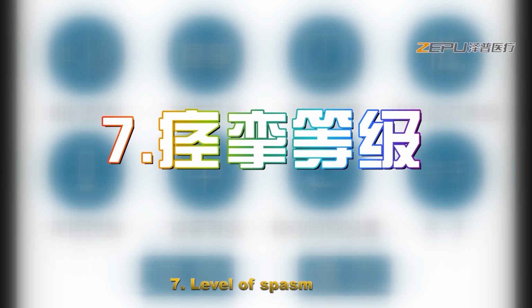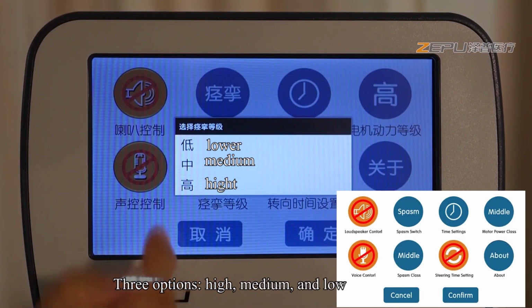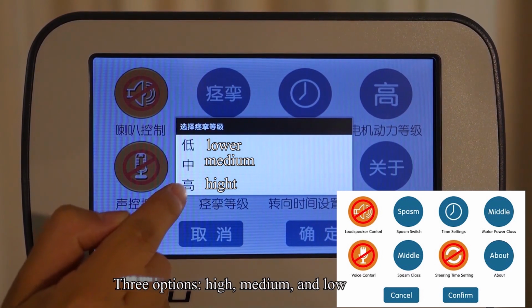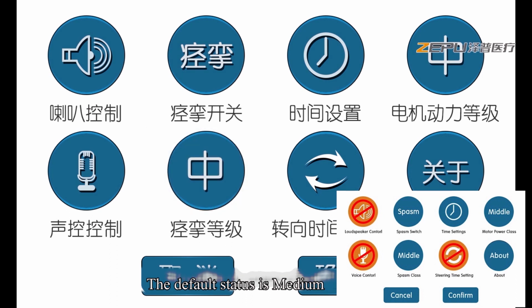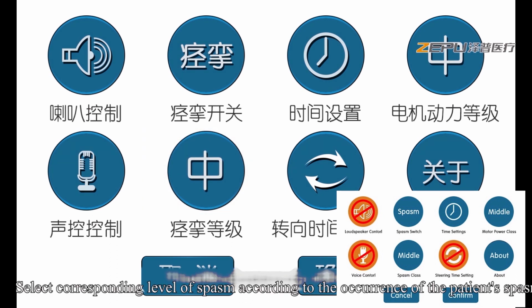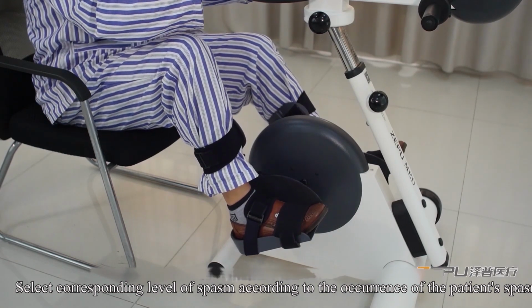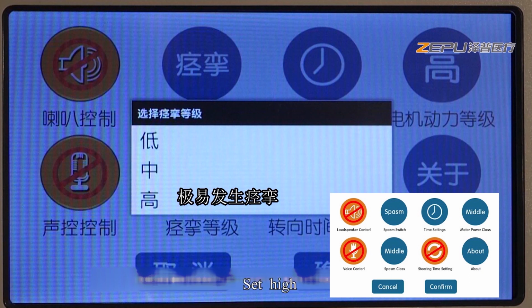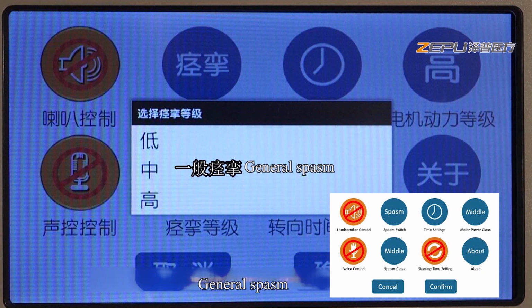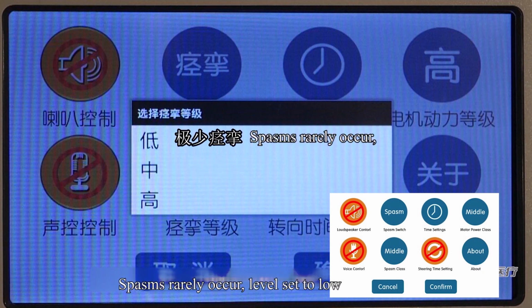7. Level of spasm. Click level of spasm. 3 options: high, medium, and low. Selection according to the needs. The default status is medium. Select corresponding level of spasm according to the occurrence of the patient's spasm. If the patient is prone to spasm, set high. General spasm, set medium. Spasms rarely occur, level set to low.